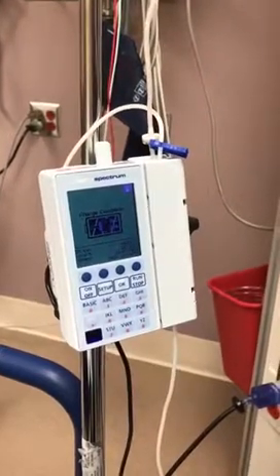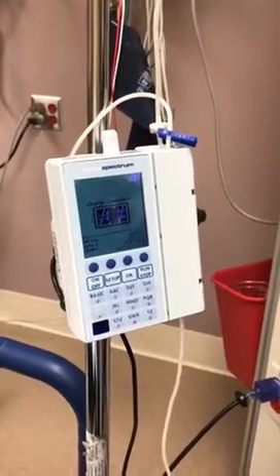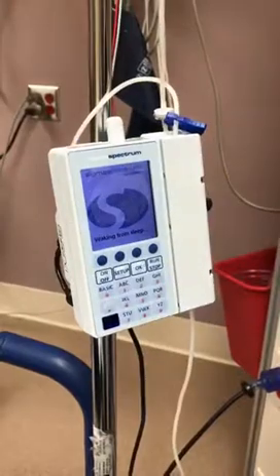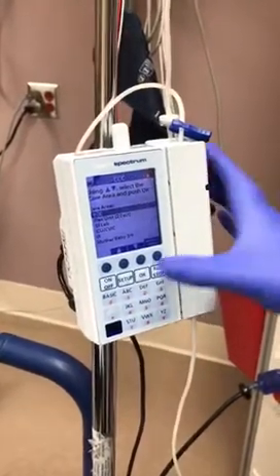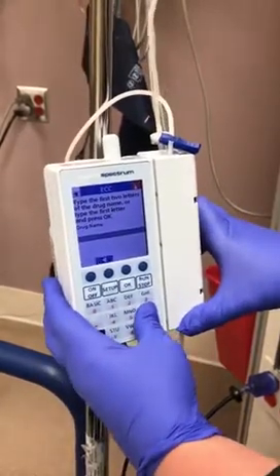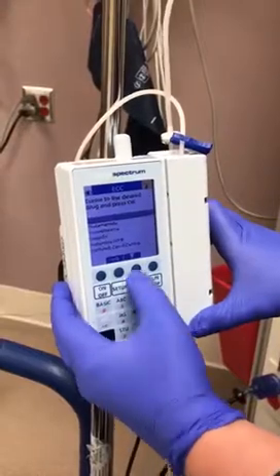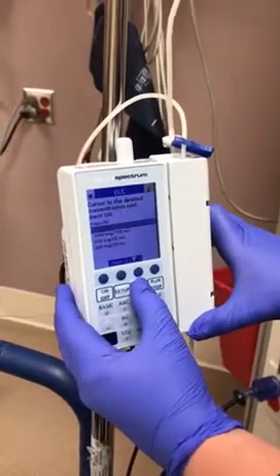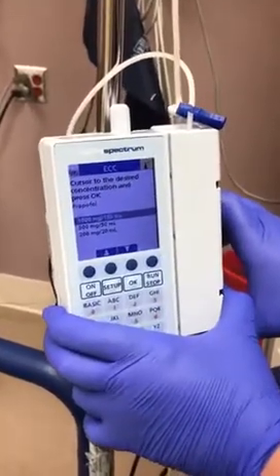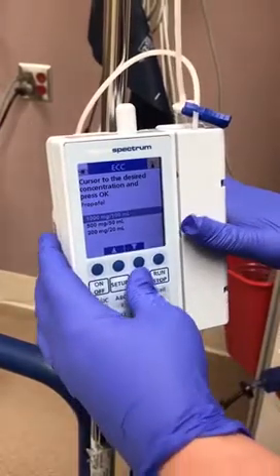So we're going to discuss how to operate the bolus dose function on the smart pump. So I'm going to turn on my pump. Go to my care area, and I'm going to type in my propofol. And this is for the 1000 milligram per 100 ml concentration, which is the larger vial for continuous infusion.